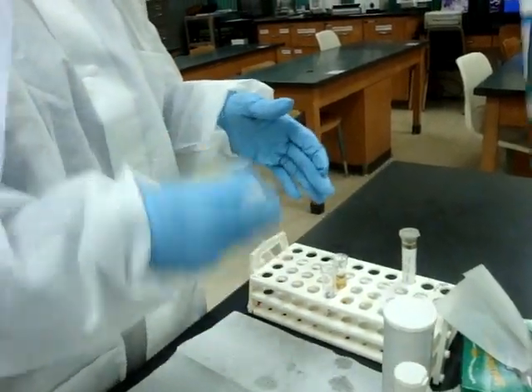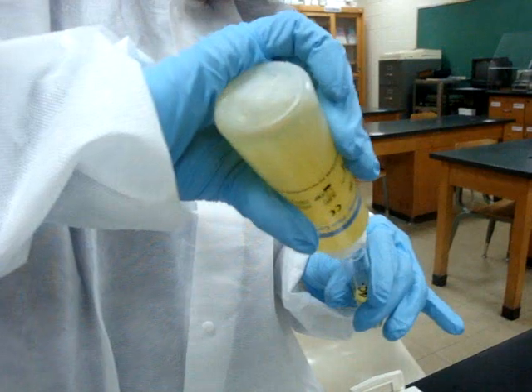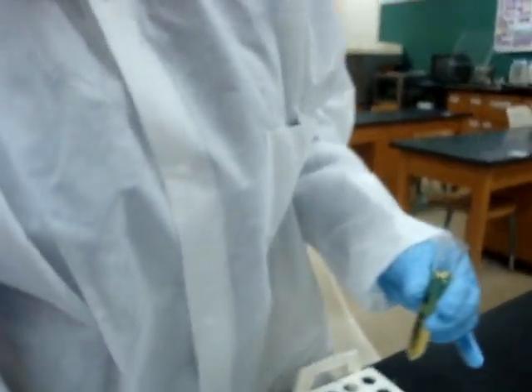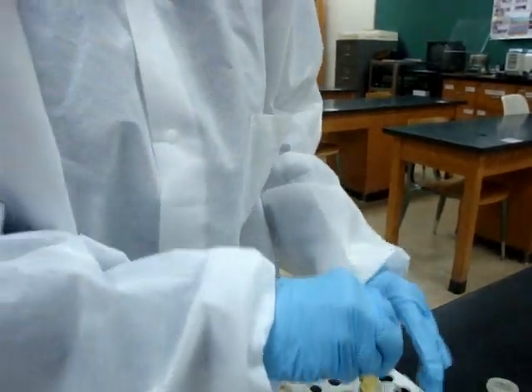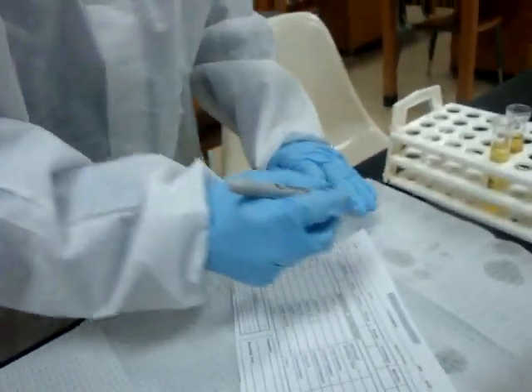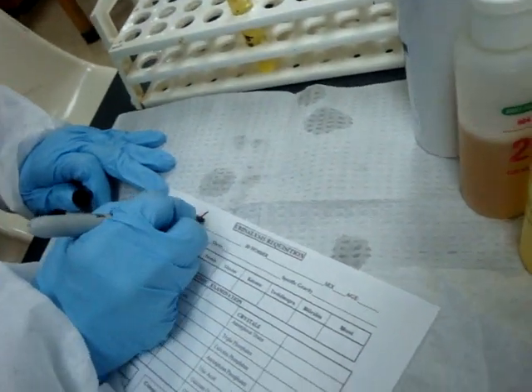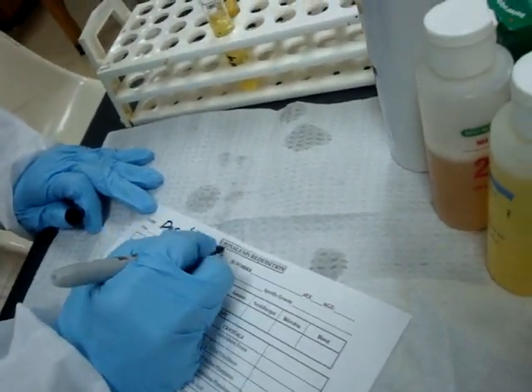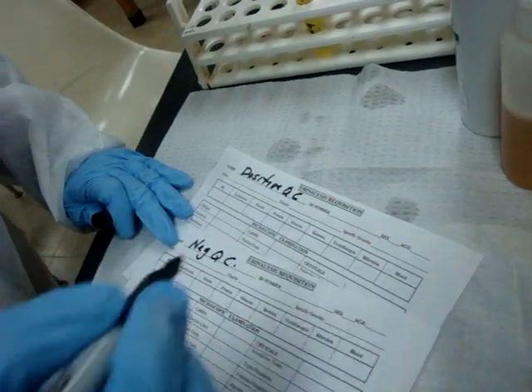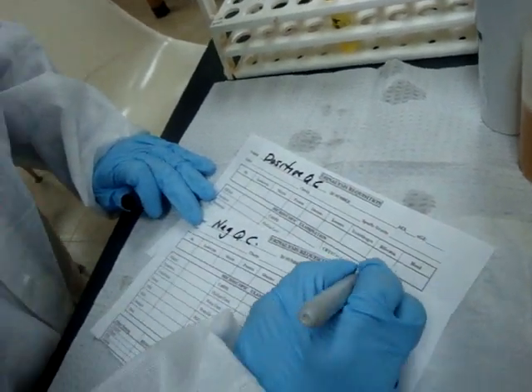Then I'm going to do the negative — I'm going to add about 10 to 12 ml of the negative quality control. I'm going to get my urine requisition and I will write on the first one positive QC and on the second one negative QC. I will put the date up here — today is 10-15-09.